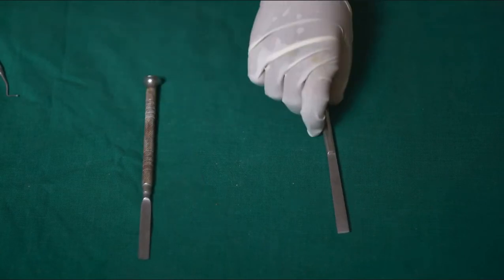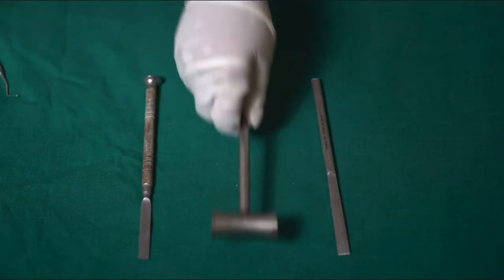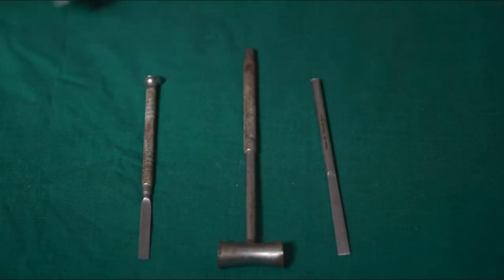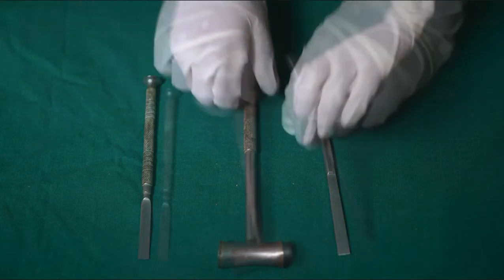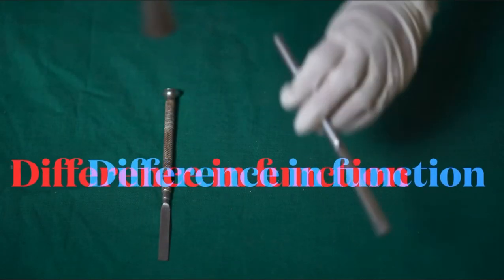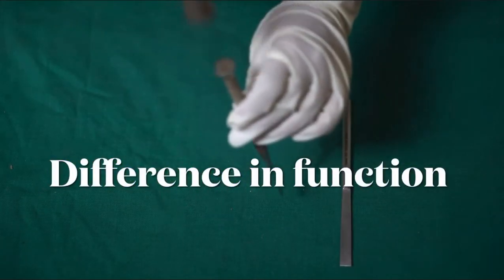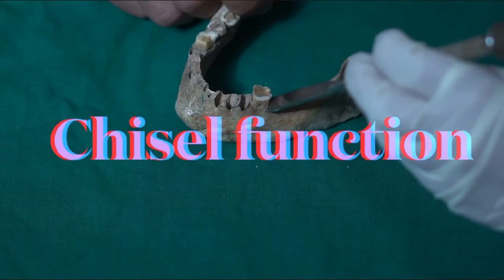One common thing between the chisel and the osteotome is that both of them require a mallet in order to function. We use a mallet with both the chisel and the osteotome.